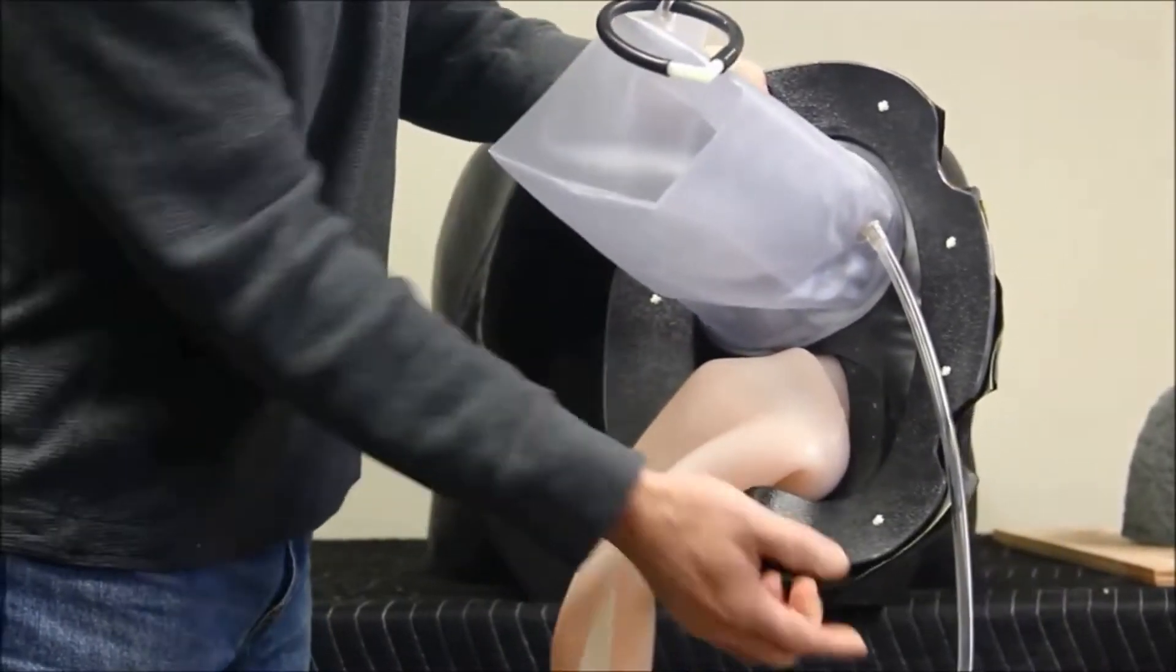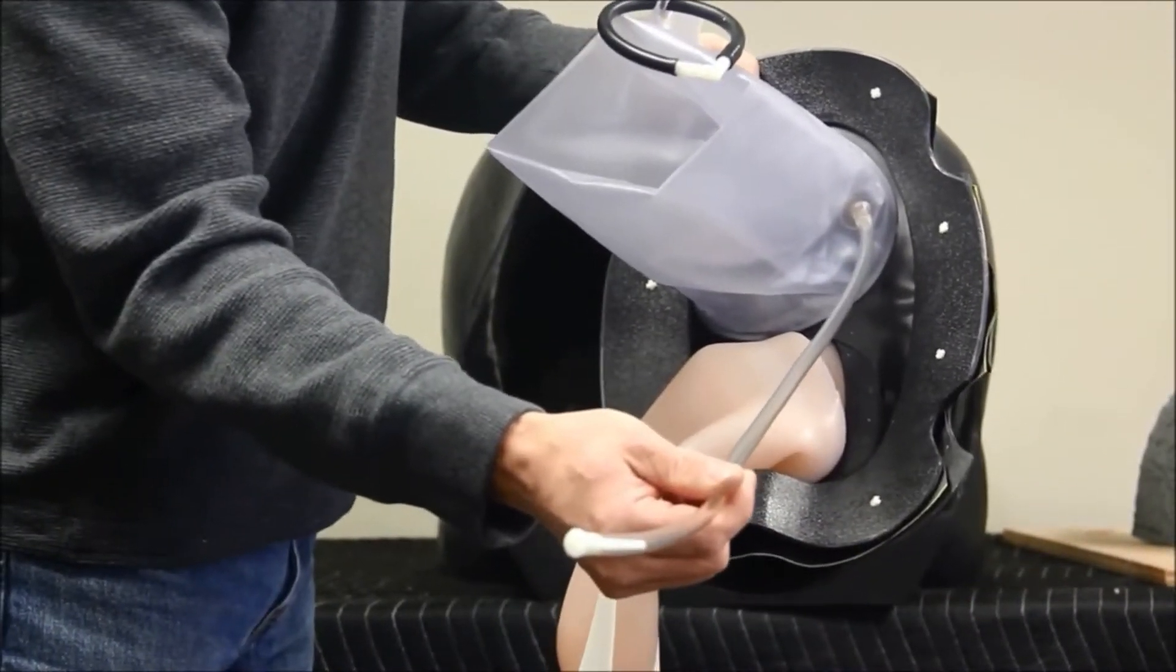This is the inflatable vinyl rectum, which is inflated through this tube with the provided pump.